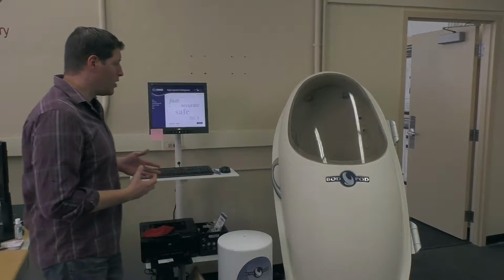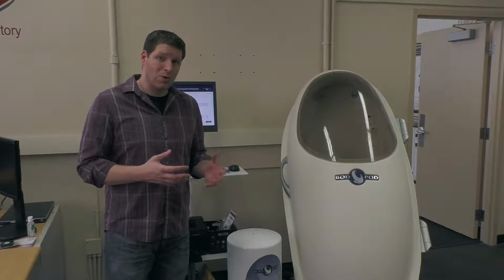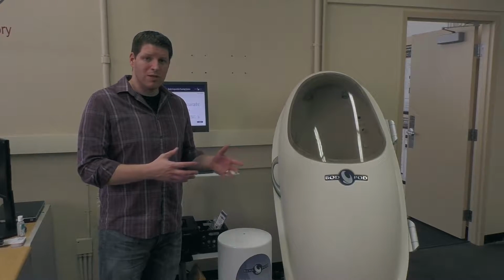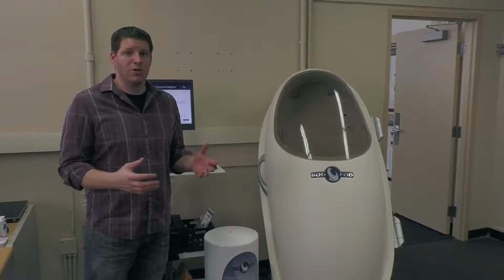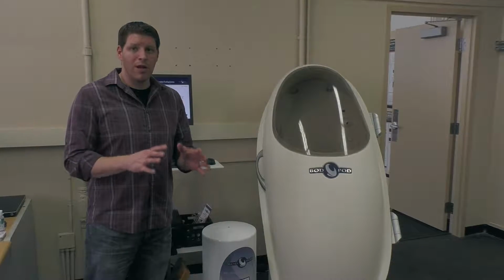Now, we've already calibrated the BOD POD. Because it's such an expensive instrument, it really goes for quite a bit of money. At any time you're using an instrument of this magnitude, it requires a fairly extensive calibration process. And if anything is out of whack with that calibration, we will not get a valid reading. So we've already done the calibration, we're ready to go.